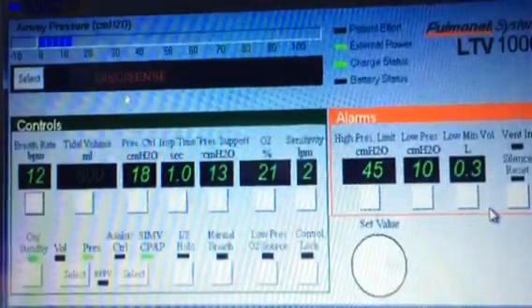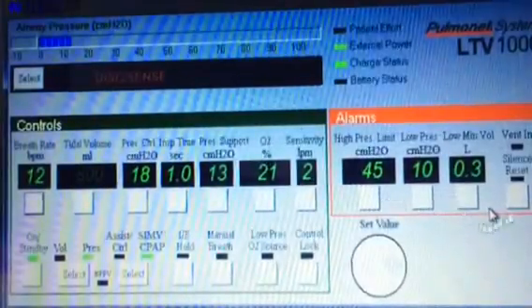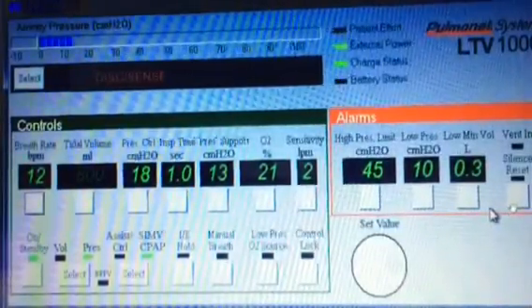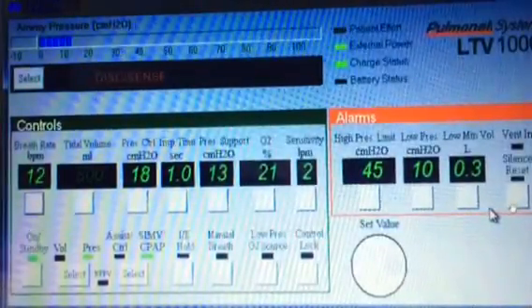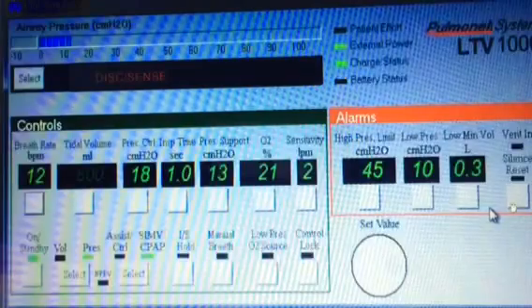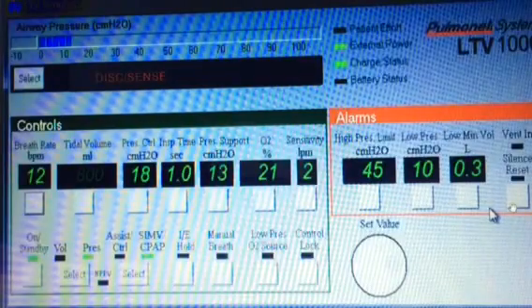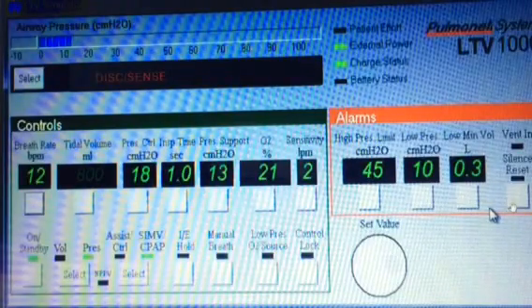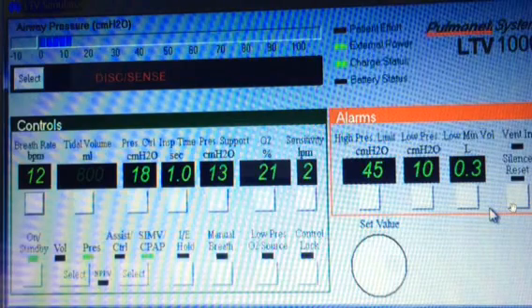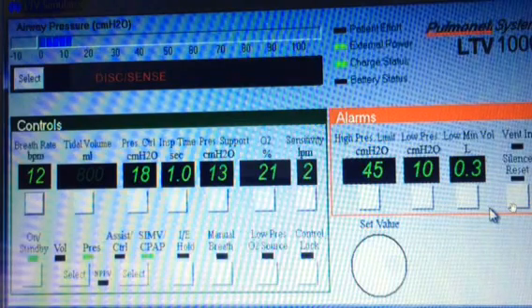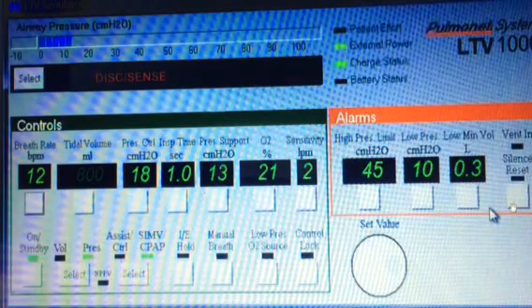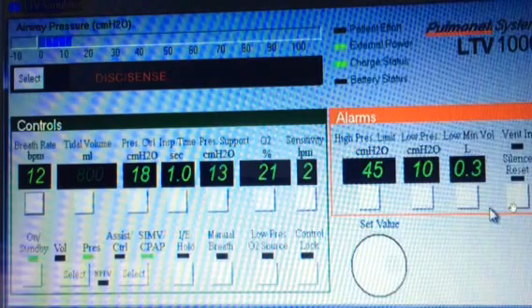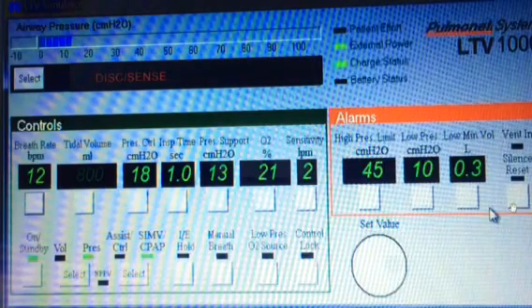Now, as I've mentioned before in my videos, it's okay to press the Silence button just because it's difficult to concentrate with something beeping at you, but do not ignore that alarm. If you have checked the things that I'm about to tell you, and you still can't find the problem within about 10 seconds, check your patient. Look to see if there is chest rise and fall, and at the same time, see if there's any signs or symptoms of distress.